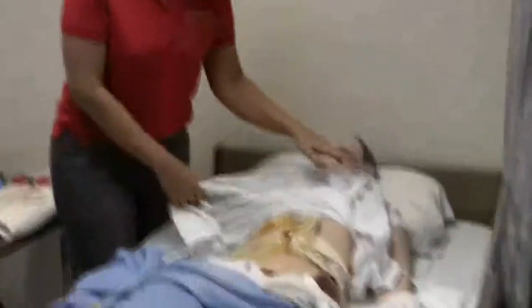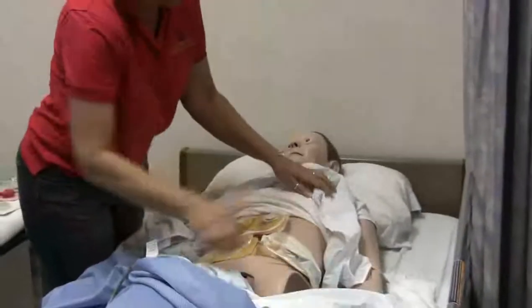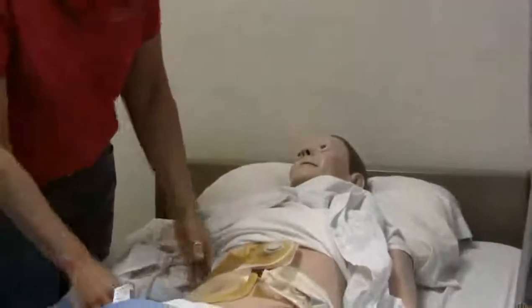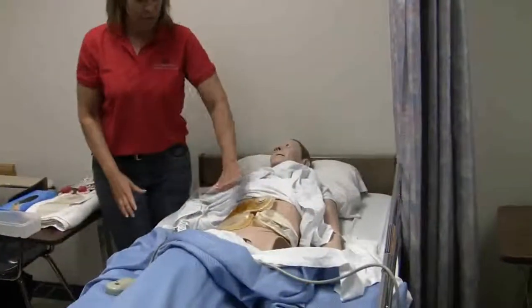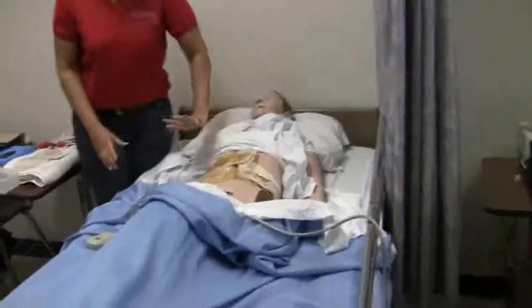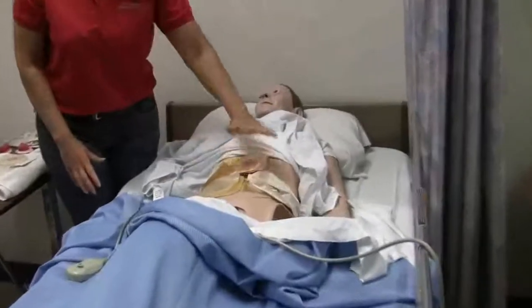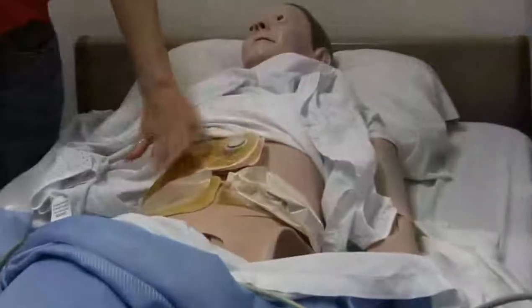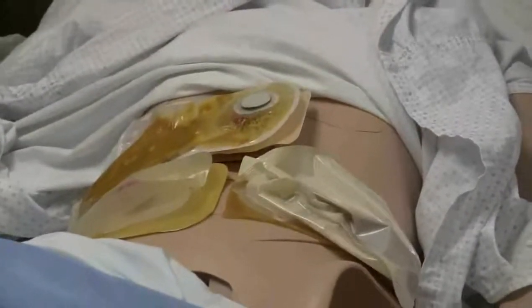I set your mannequin up this morning so we have some stuff to look at. I love to play, so I have three different ones on here. Can you guys tell me by looking at them which type each one is, and why?